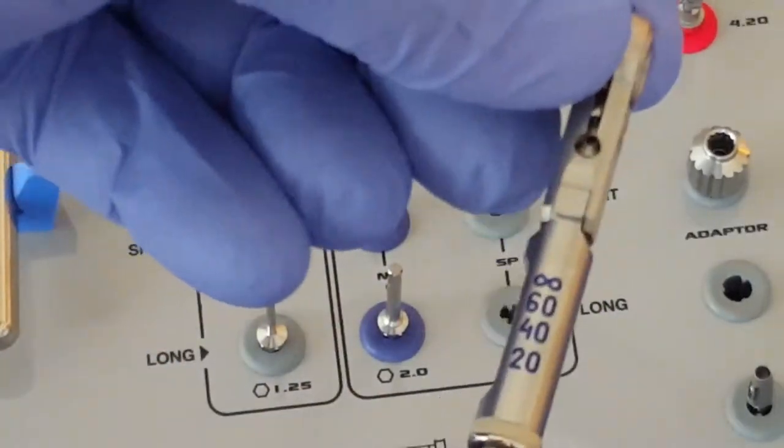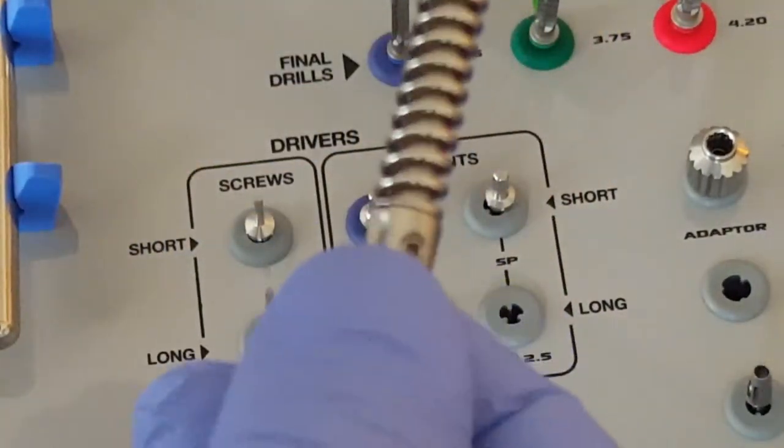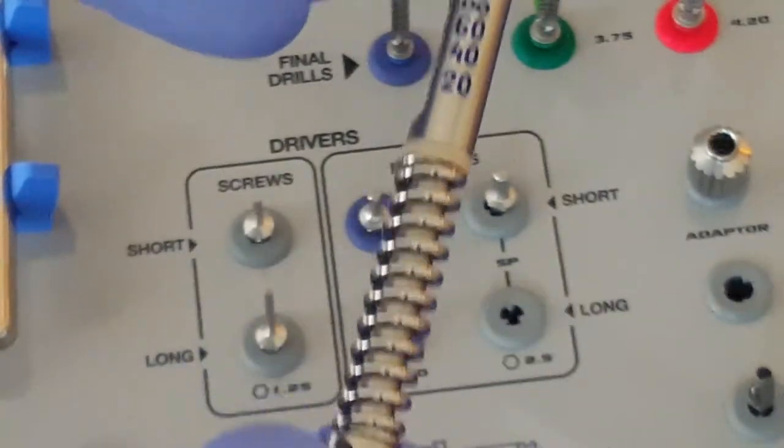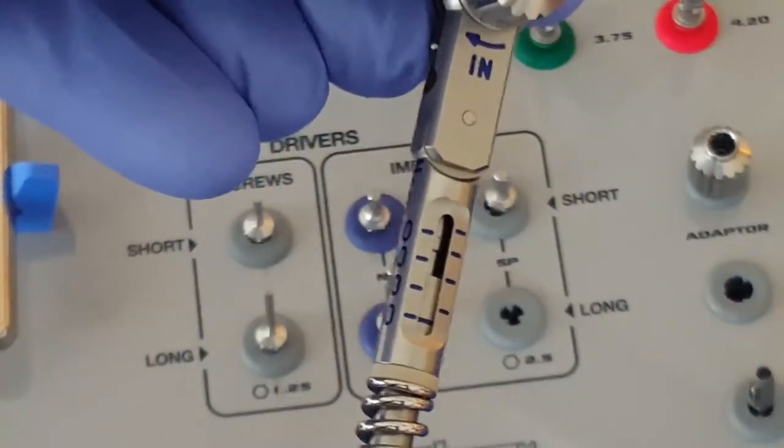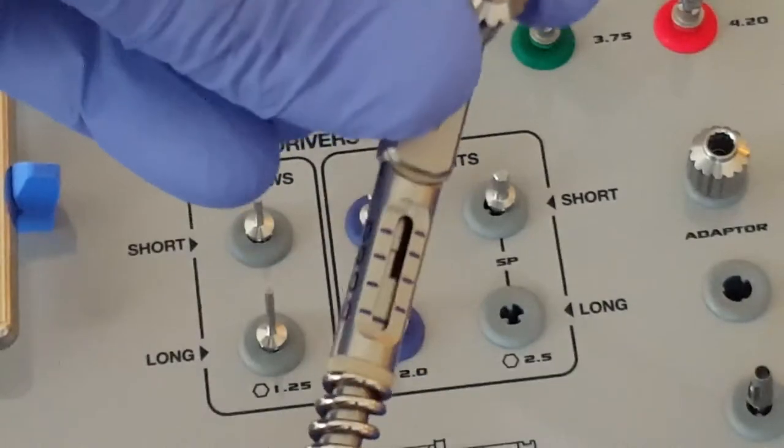The adjustment of this can be done by rotating the handle. When you rotate it, it will change the position of the setting.